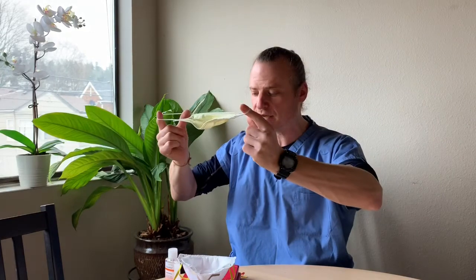After putting on a standard surgical mask, take your fingers behind your ears — not here, do not touch the front. Reach behind your ears to take it off. This type is disposable, so just drop it in the garbage and then sanitize your hands afterwards.